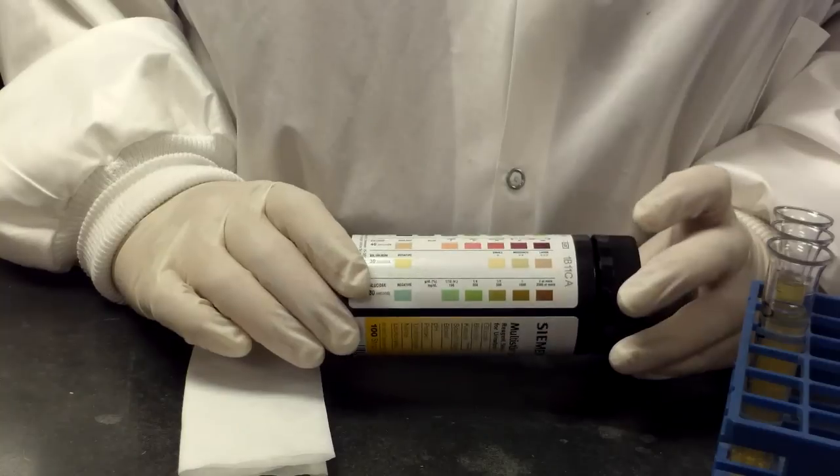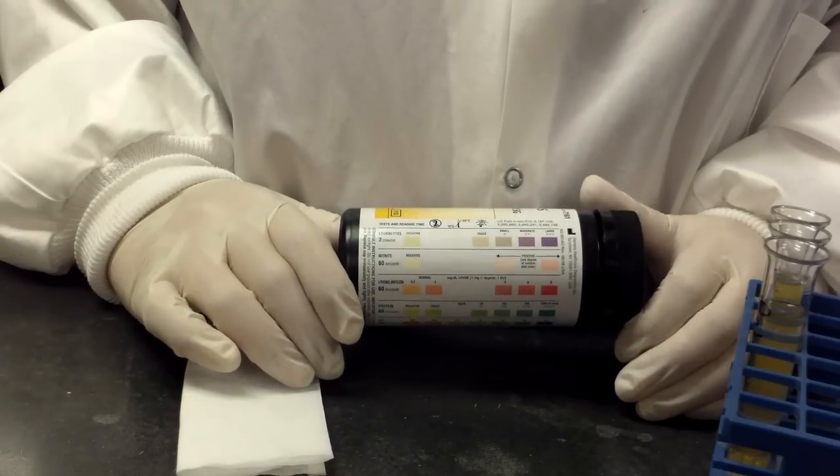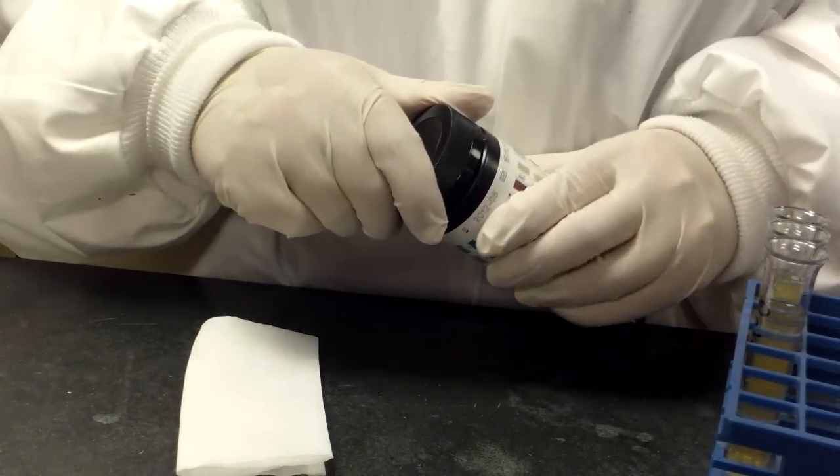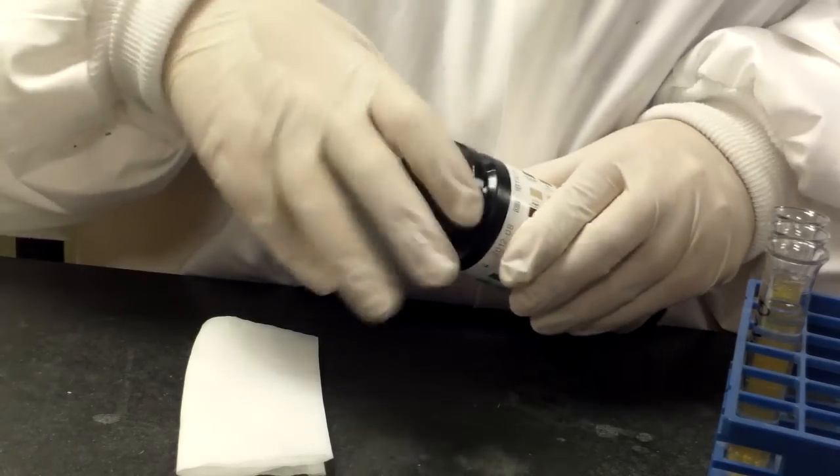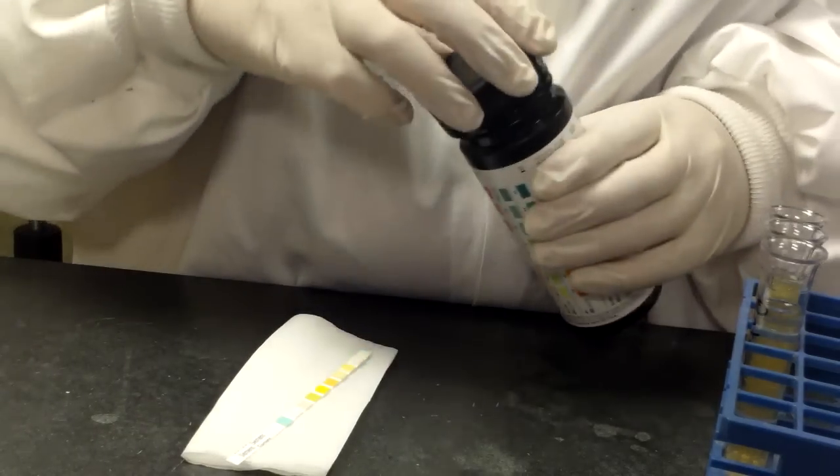It basically is 10 different tests and you'll learn about those in lecture, all on one little stick. It's called a dipstick because you take the stick and dip it in the urine. Very complicated process here.